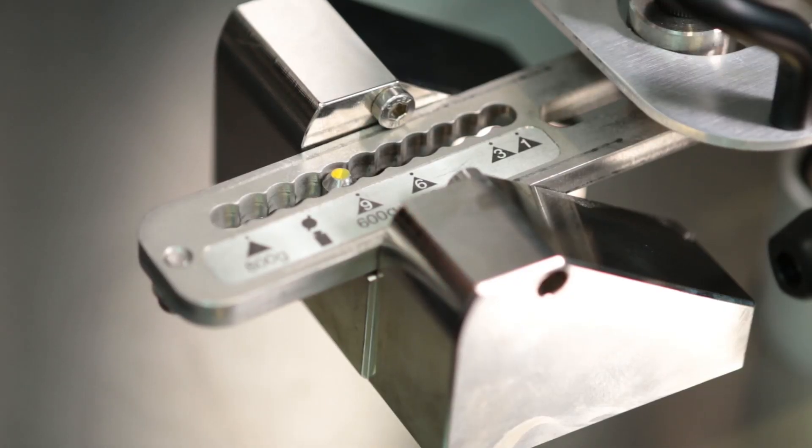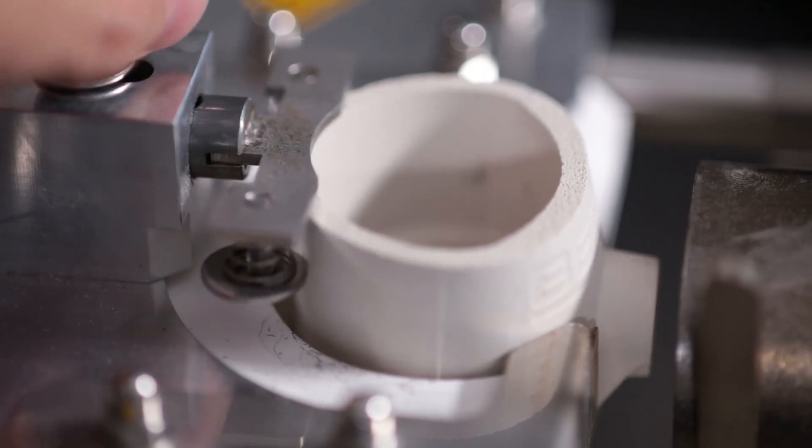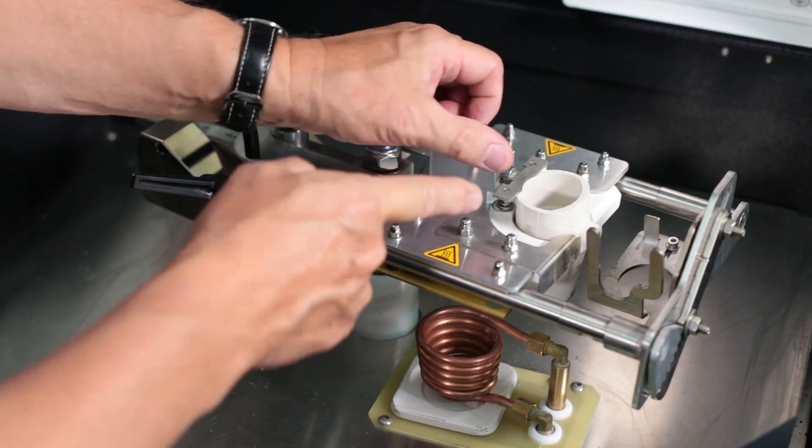The sizes and weights of the molds are marked on the casting arm. Due to the design of the crucible holder with integrated protection, the crucible can be fixed in its position towards the mold.